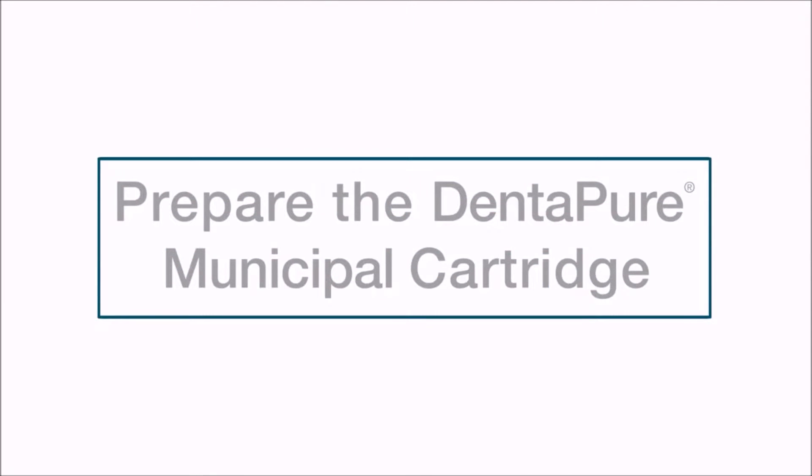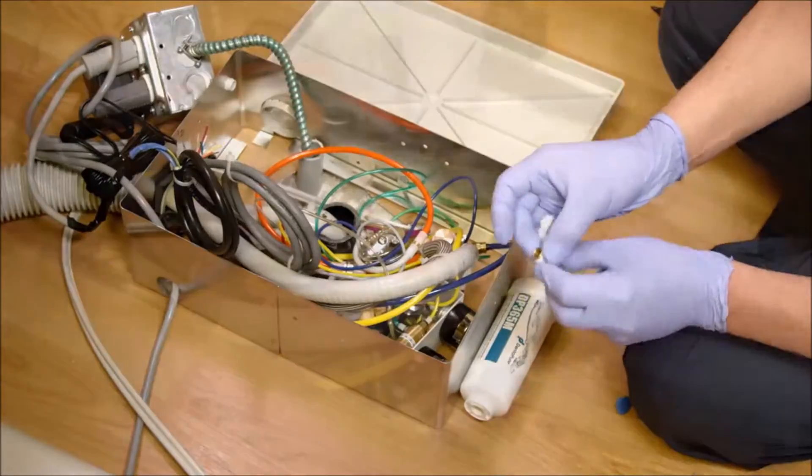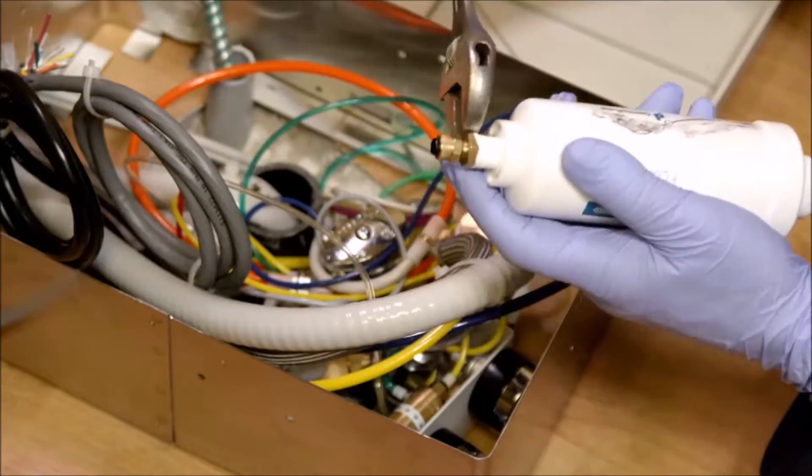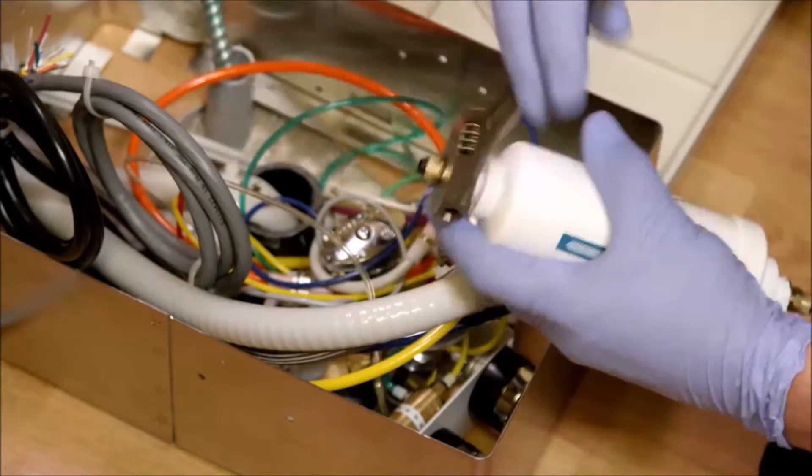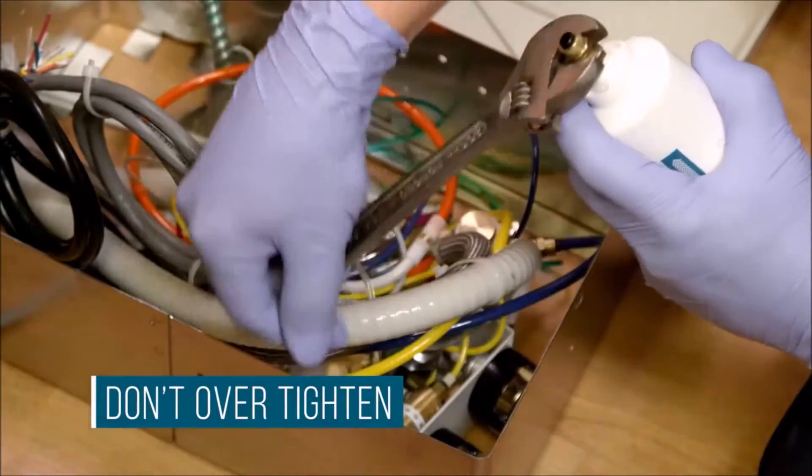Now it's time to prepare the cartridge. Using Teflon tape to ensure water tightness, install the included Polyflow fittings and tighten with your adjustable wrench, taking care not to over tighten as this could lead to cartridge damage.